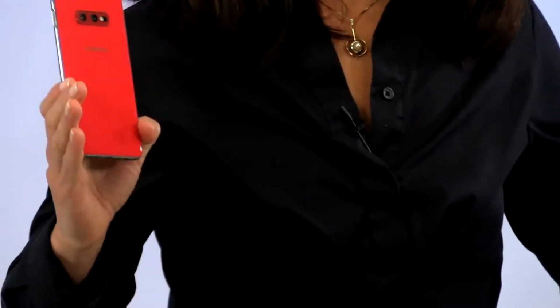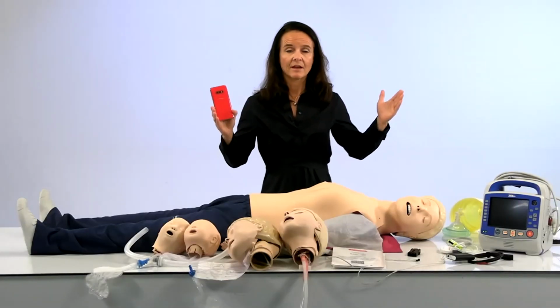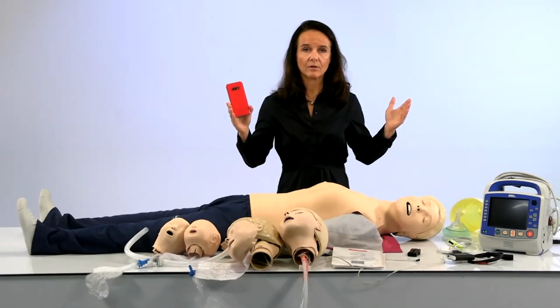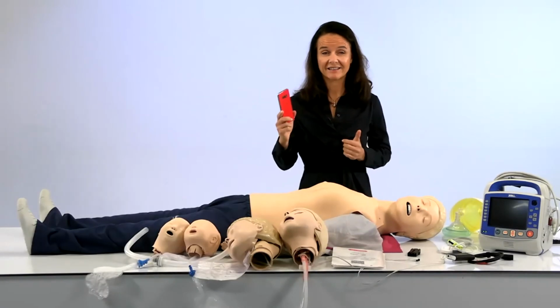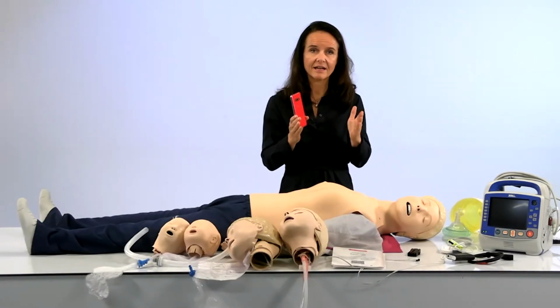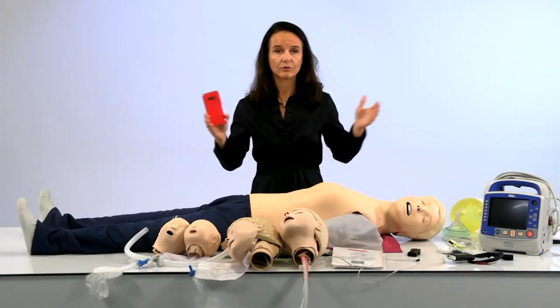When you're doing a session with Team Reporter, the session can normally be maybe 10 minutes or 15 minutes or 5 minutes, depending on how your team trains. During that session, the video recorded from your phone when connected to the mannequin is actually aligned, so the video comes at the same time as compression events from the mannequin. However, reviewing a 10-minute video is a bit too much if you're doing a debrief. So what this app does is compress it down to 1 minute, taking the most coachable moments from that full session.